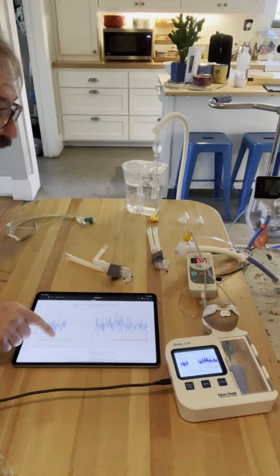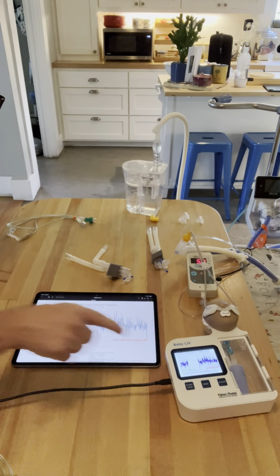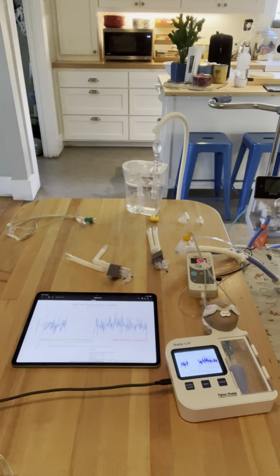So it's coming in at green. You can see it green here, and it lays right over the green RAM cannula. 2 centimeters of water pressure. The vibrations aren't that high. And what this tells you is that there's nothing special about one cannula over the other.